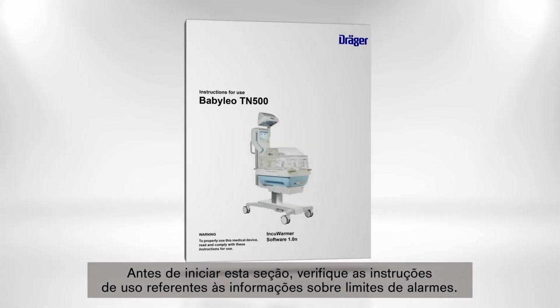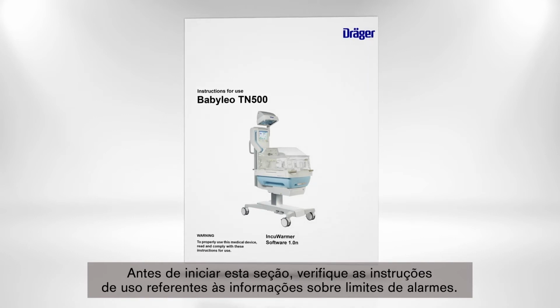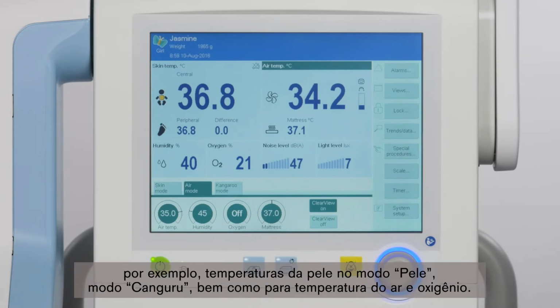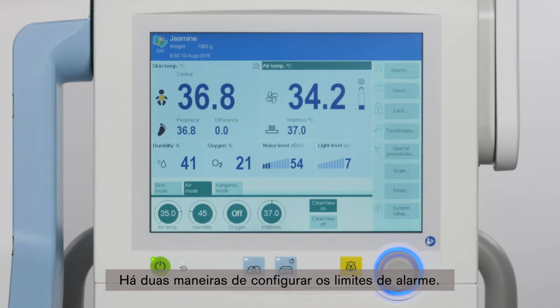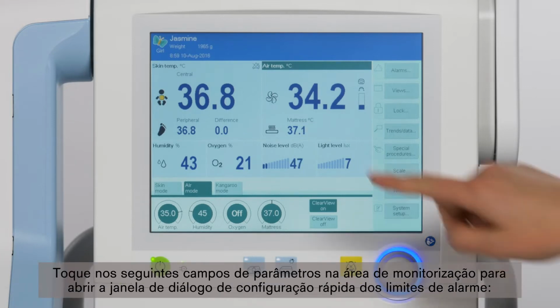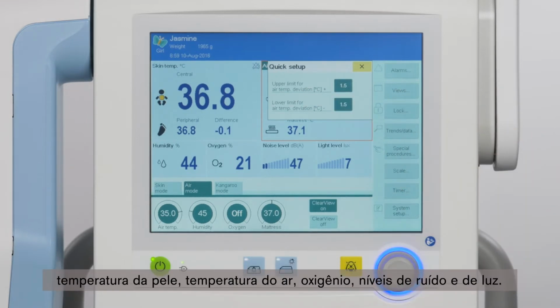Before beginning this section of our video, please check the instructions for use concerning all pertinent information on alarm limits. Alarm limits can be set for many parameters, for example, skin temperatures in Skin Mode, Kangaroo Mode, as well as for air temperature and oxygen. There are two ways of setting the alarm limits. The Quick Setup dialog window for the alarm limits can be opened by touching the following parameter fields in the monitoring area: skin temperature, air temperature, oxygen, noise, and light levels.